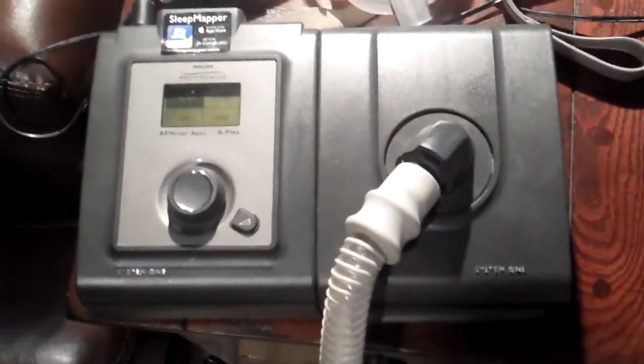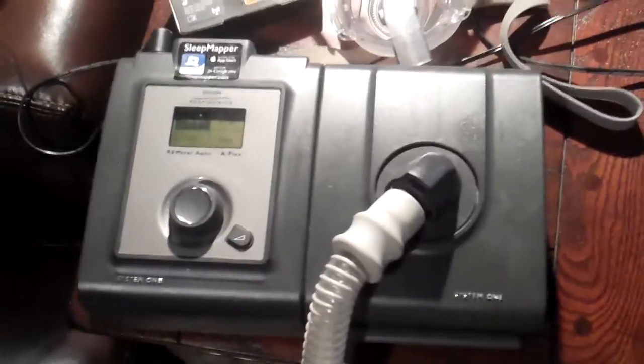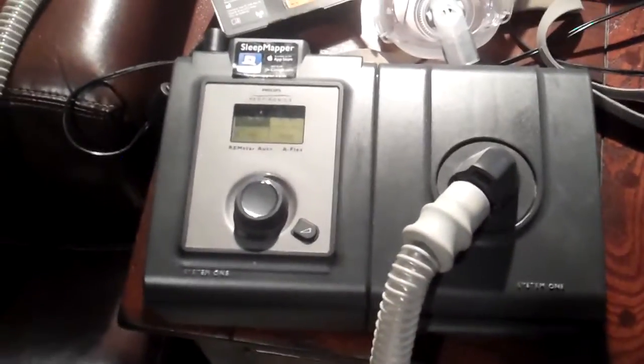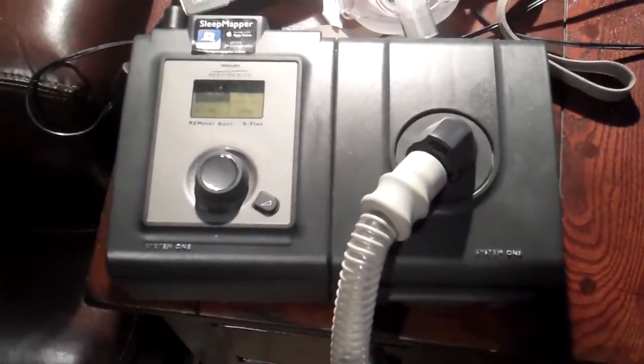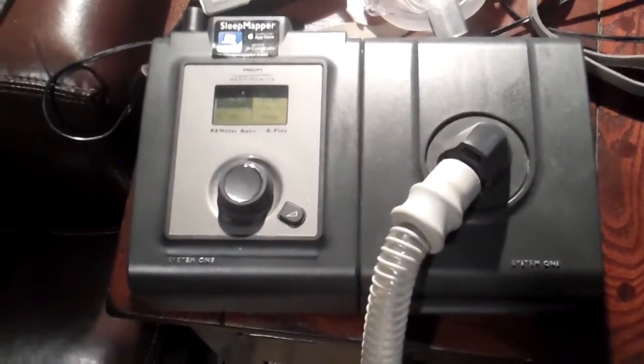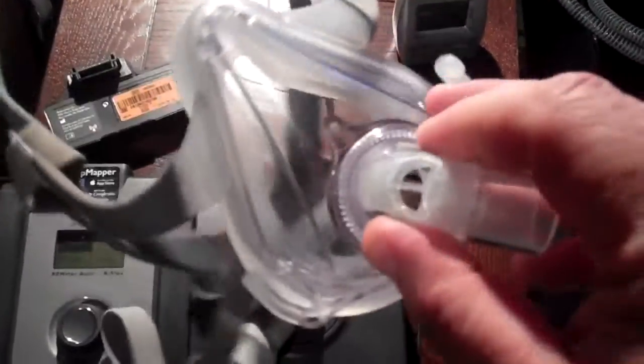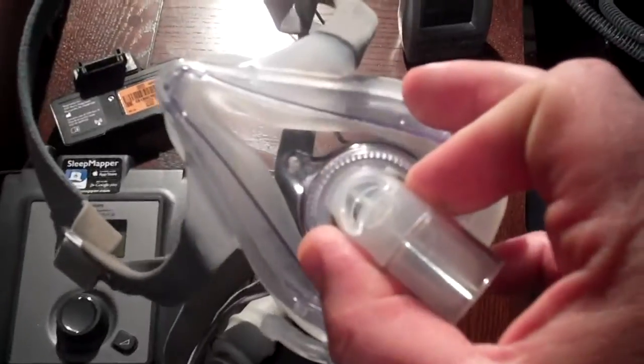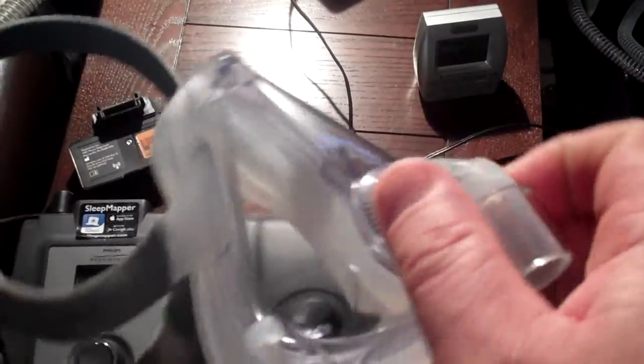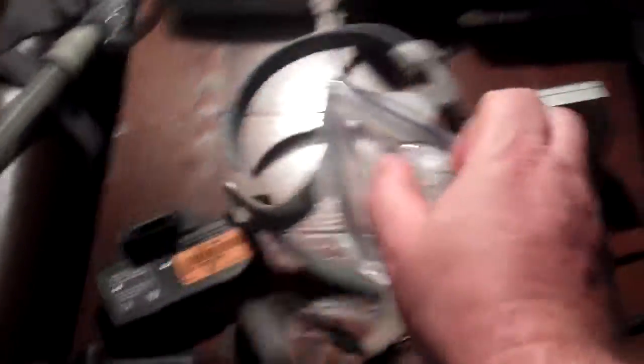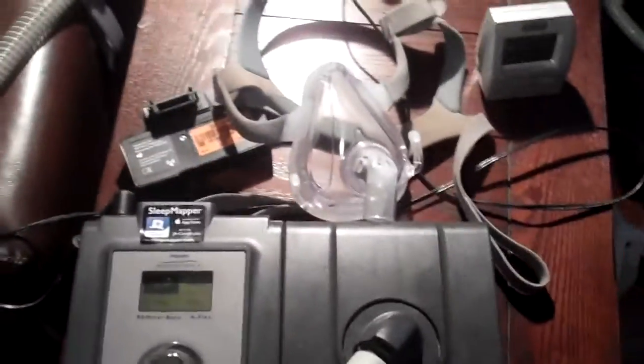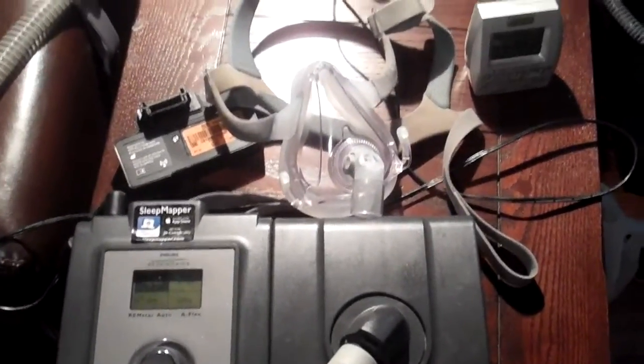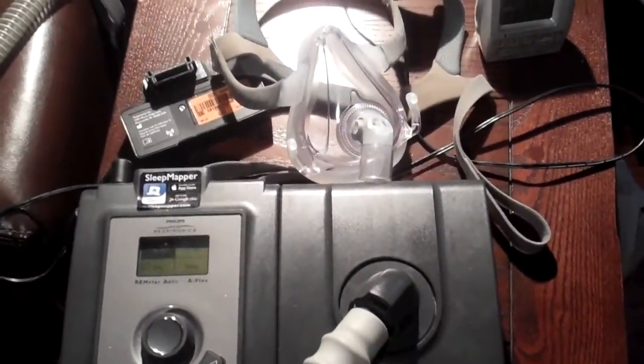And don't get hung up - I got this machine through the insurance company originally. They have a lot of silly rules that you have to use it four hours every night, because they have a lot of problems with people that get the machine and they don't like it, they don't like the mask on their face. It takes a little bit of getting used to to have this on your face for eight hours at night. And a lot of people are like claustrophobic, they don't like the mask, but they should really see a shrink about it because this is a real lifesaver. But they have other styles that just go nasal pillows and stuff that are a little bit easier to deal with. But most of the problem is psychological in those cases.